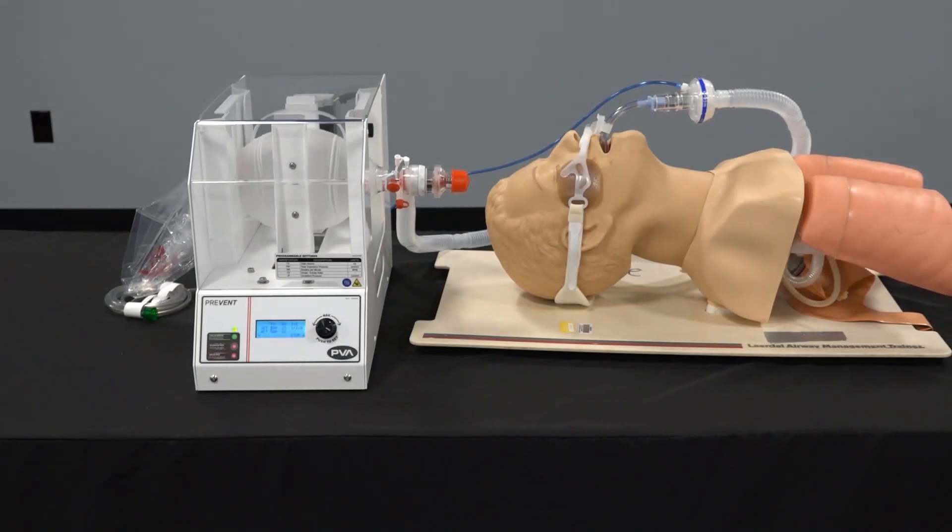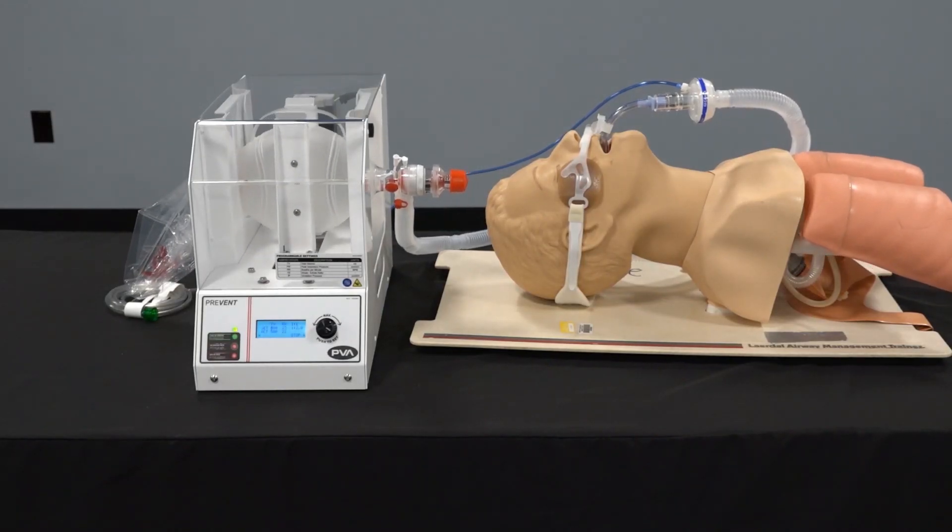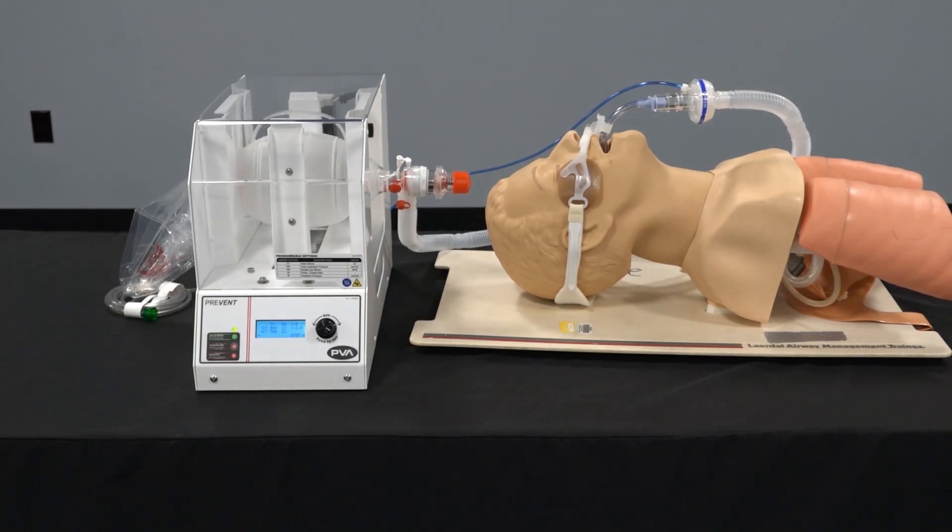Prevent is an emergency ventilator designed specifically to treat patients suffering from COVID-19 respiratory failure. This motorized device imitates the motions of manual resuscitation by automatically compressing a bag valve mask to provide air to the lungs of a patient.